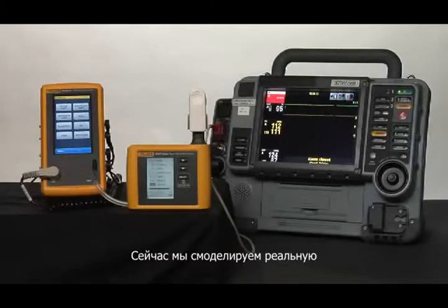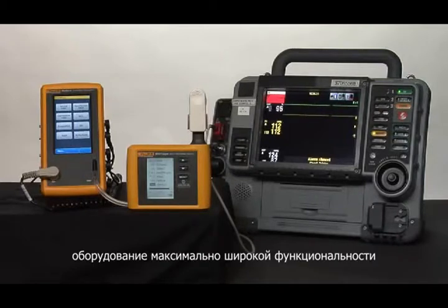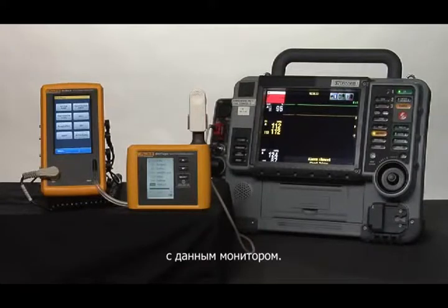Today we're going to try out a scenario where we get a call from the clinical unit that the patient monitor is not working. They're not very specific, so we need to take a pretty fully functional set of equipment up to be able to quickly evaluate whether this patient monitor is working or not working.